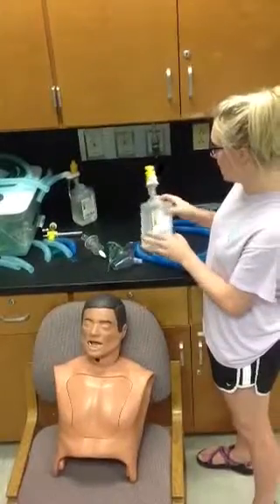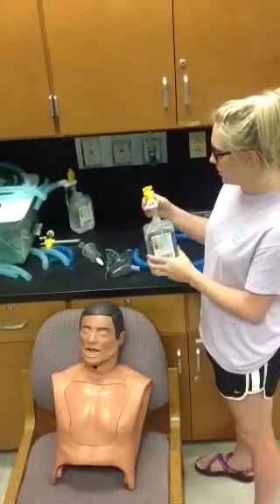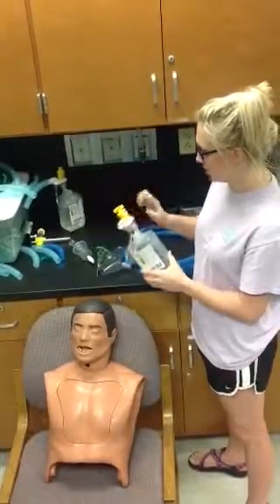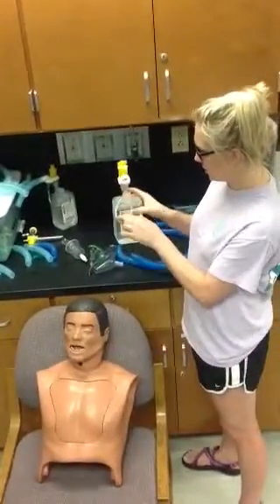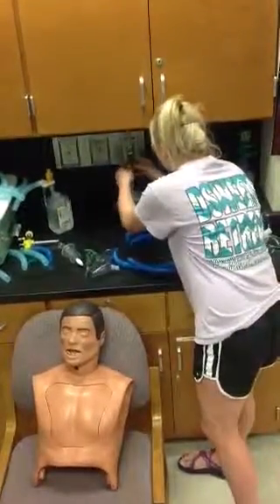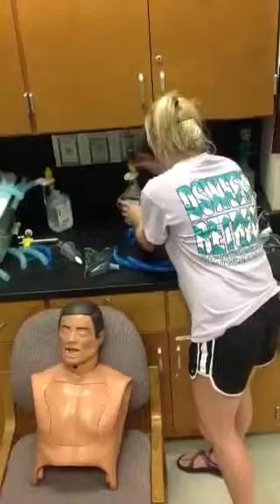You're going to get one of these aqua packs and you'll screw on your nebulization device here, which is your Venturi device that has your entrainment ports. You'll connect your tubing — puncture it in right here — and you'll connect it to your flow meter.